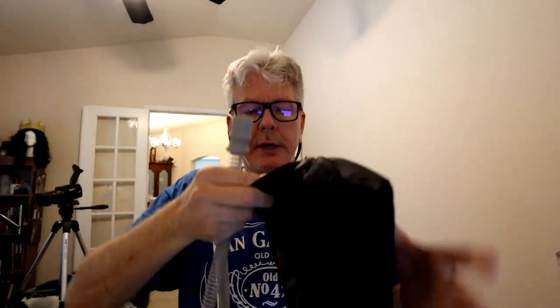No filter needed for the actual device itself — you don't have to replace anything. I did read up on the bag: you can use the bag to clean your mask. You have to use standard tubing though — the heated tubing won't work. You put your mask in the bag, zip it up with the hose sticking out, connect the hose to the cleaner, and do it that way. The bag is really just a zip-up carrying case without any special design for the tubing.